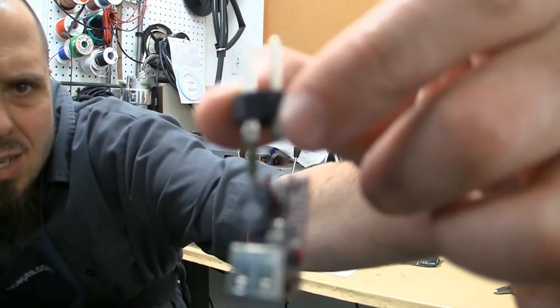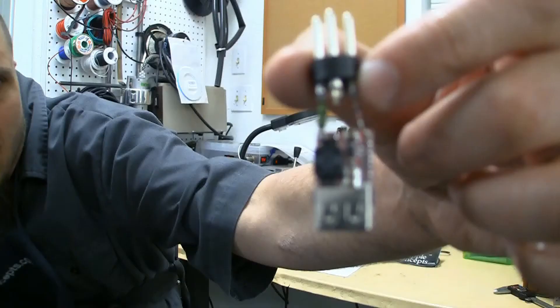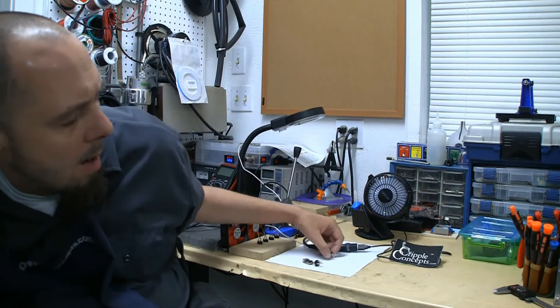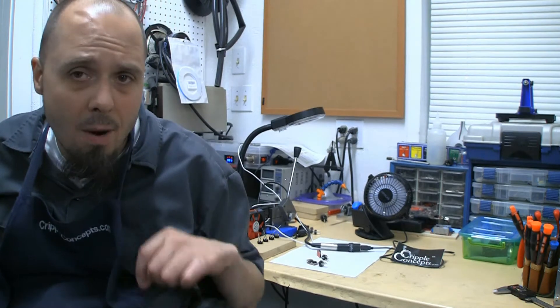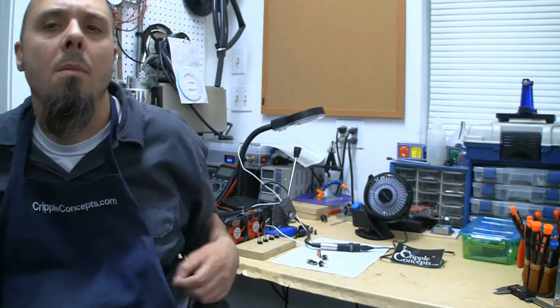The autofocus doesn't want to work, so I'll throw a picture up there anyway. What we used to do is have just one straight lead and then one fused link, and now we have the fused link and a diode. Simple change — costs me like a dime extra on each one to make it. Not a big deal.